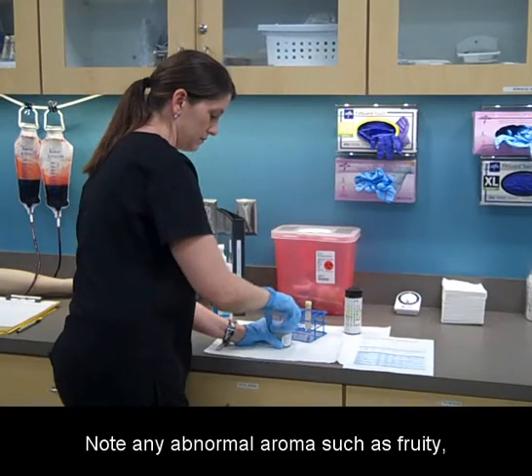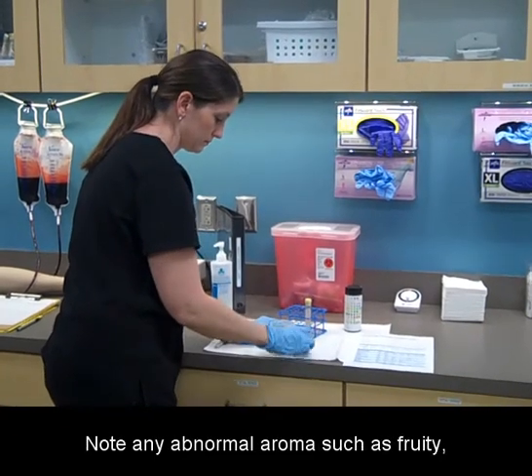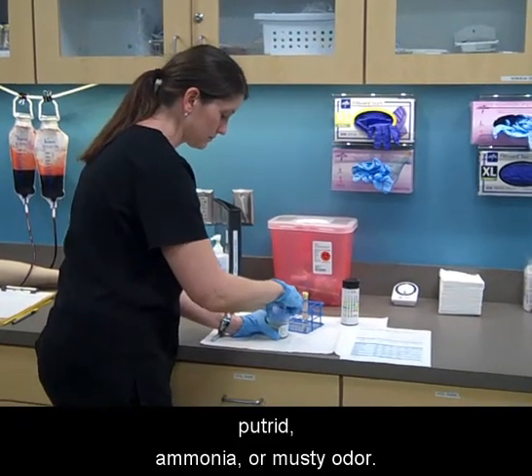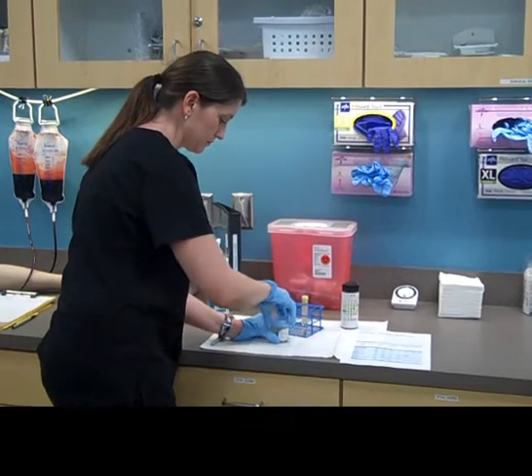Note any abnormal aroma such as fruity, putrid, ammonia, or musty odor.